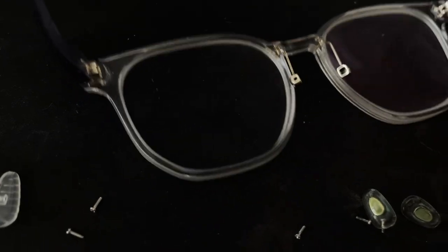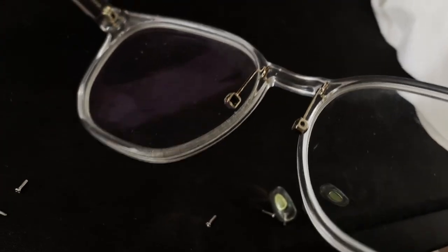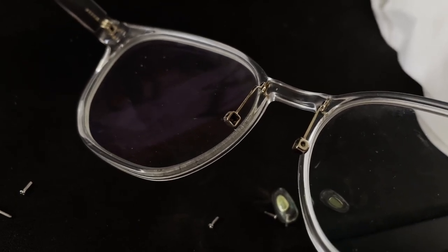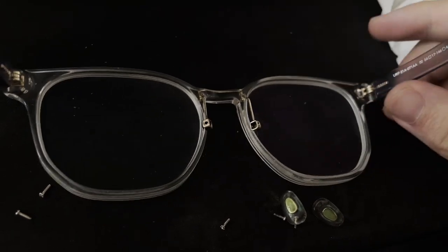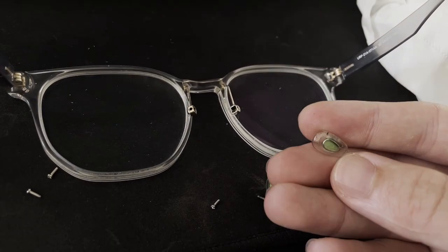So finally I decided to try to figure out what's wrong with it, and when I took off the nose pads I realized the green stuff kind of extends into the metal bits that connect to the glasses. I believe the material is something like copper, where when it rusts mixed with sweat it starts to go green.